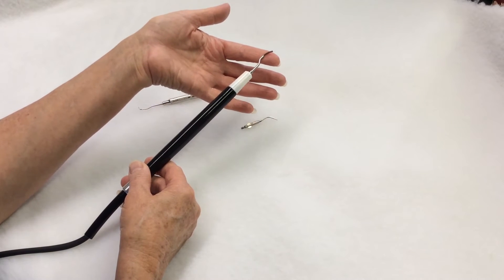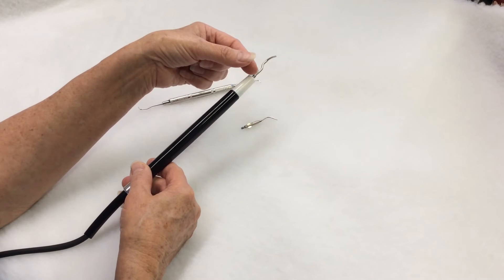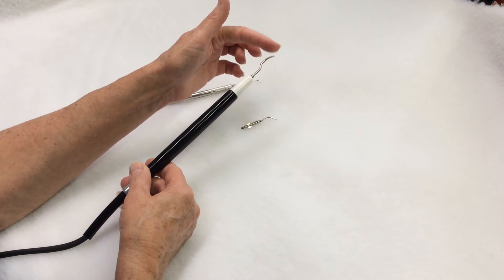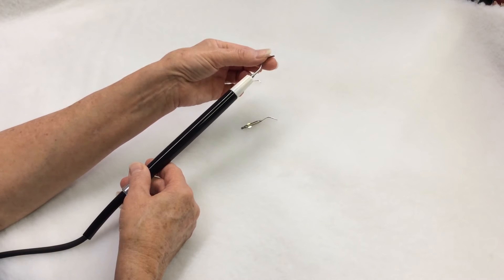So why does the scaling tip burn the fingers? Actually it doesn't. What you are feeling is the heat that is generated by the vibration. The tip stays cool.